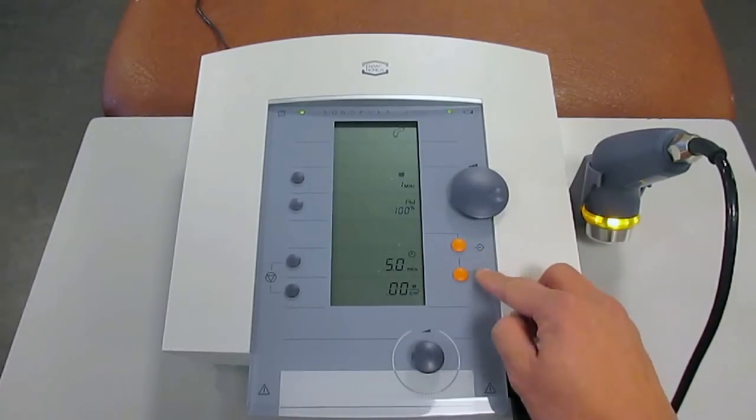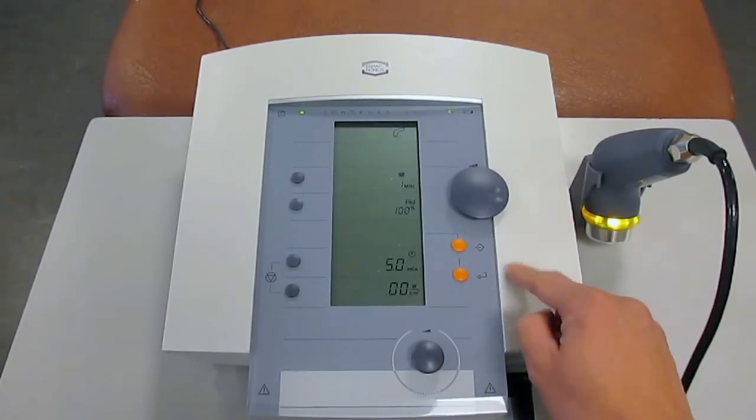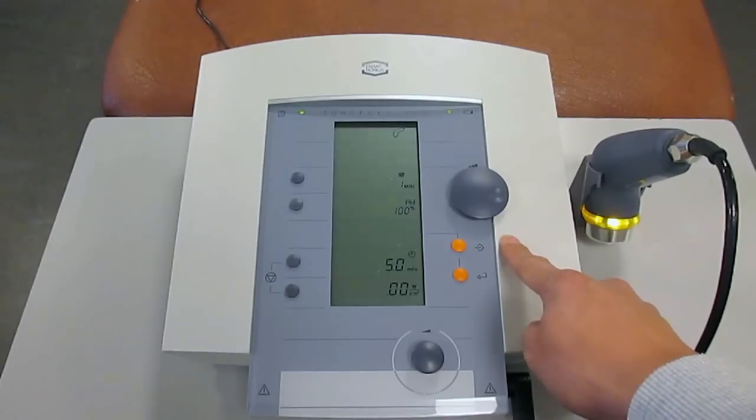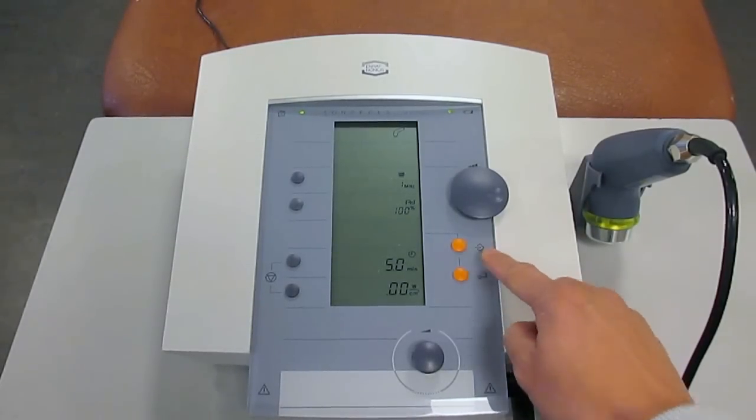These orange buttons over here are programmable settings that you can put. Let's say, for example, there is a setting that you use frequently in the clinic due to the conditions that you see. You can use these orange buttons to program the settings so that you can readily access them.